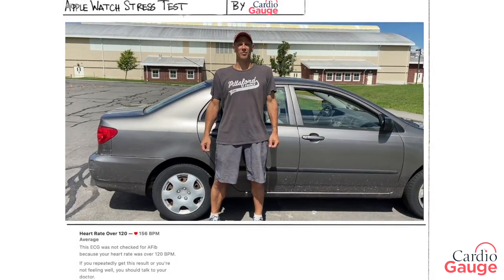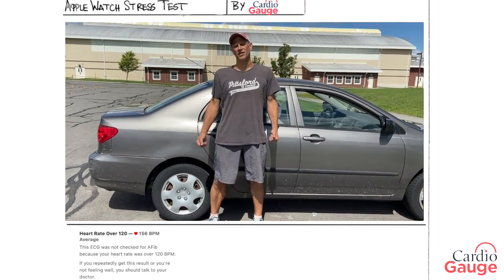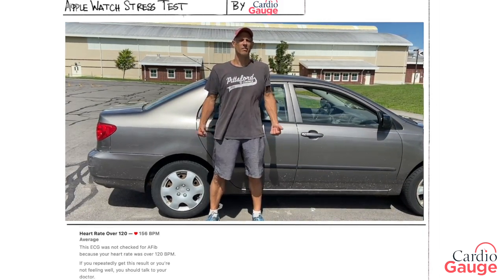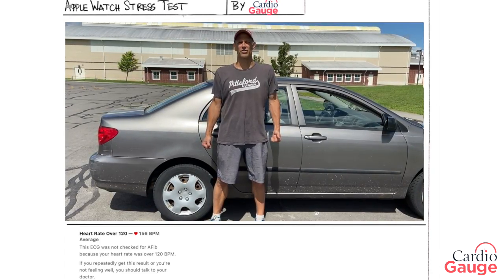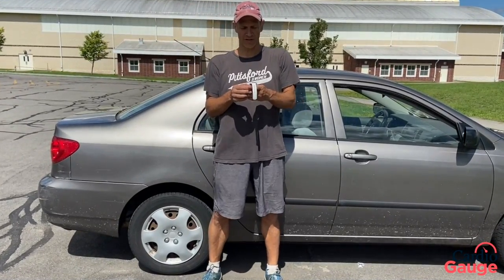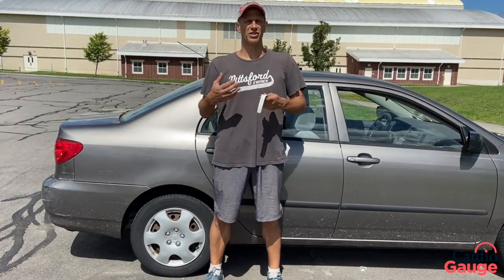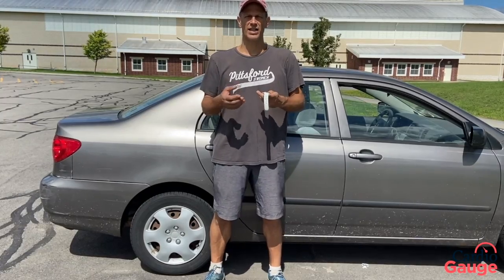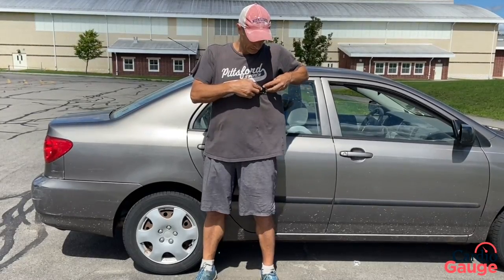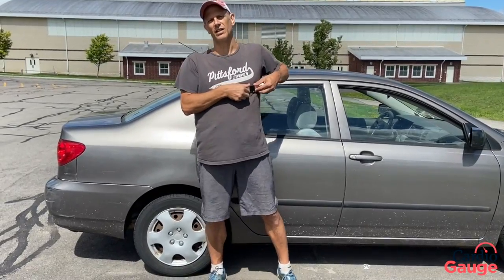I'm going to do a different video today. It's a beautiful day outside so I decided I want to go for a run, and I was thinking I wonder how my heart is — I haven't done any tests on myself in a while. I thought maybe I could do a stress test using an Apple Watch. I don't have an Apple Watch but my wife does, so she hooked me up with hers. I'm going to go for a run, and once I get my heart rate really going — super tired, out of breath, sweaty — I'm going to put the Apple Watch on my chest and put my finger on the little crown and see what the EKG looks like.